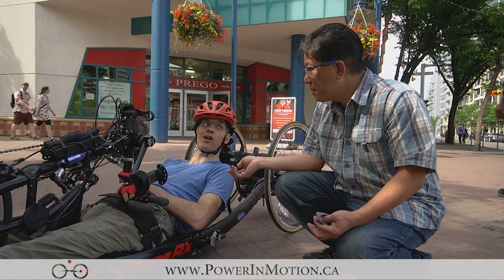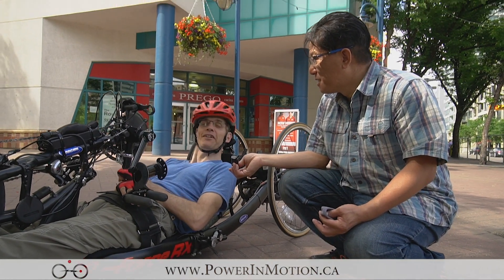Unlike the legs, which can pump you up the hills pretty easily, the arms sometimes — if you're stuck at the bottom of the hill — it's a little more effort.